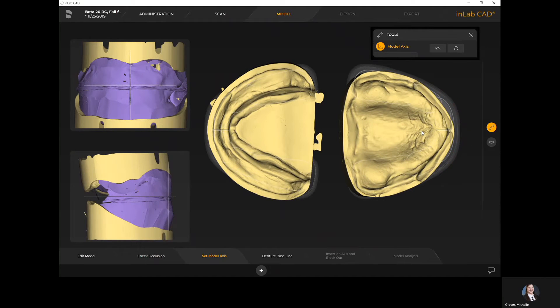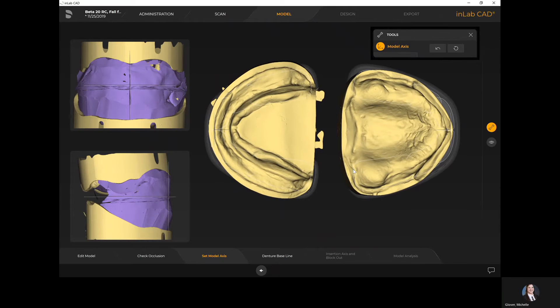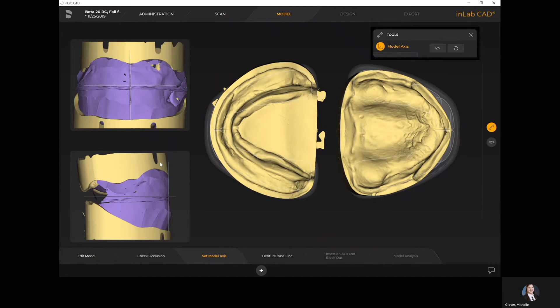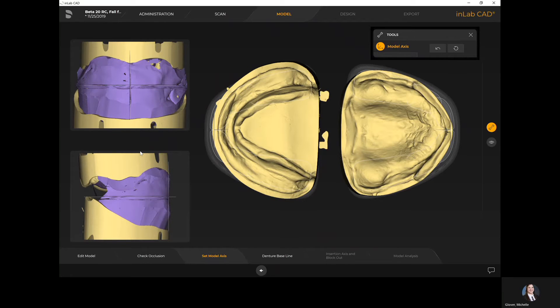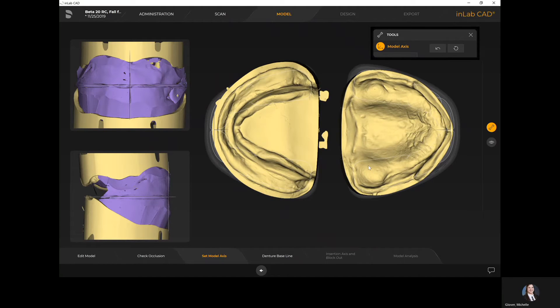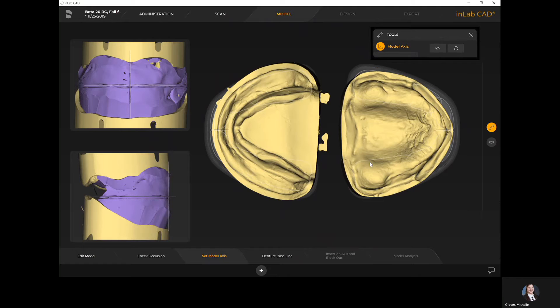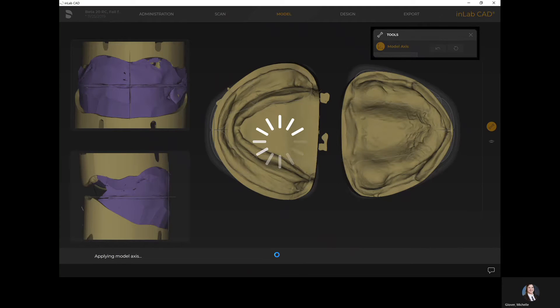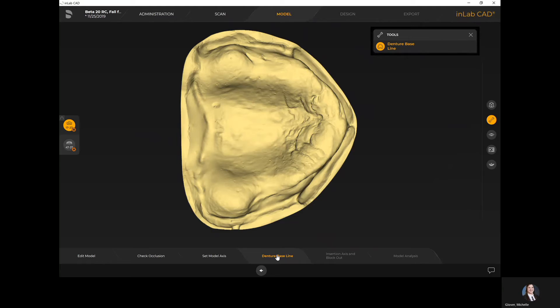Now in the set model axis step, we're lining up a couple of key things. On the right-hand side we are lining up our arches within the two horseshoe shapes representing the upper and lower jaw, broken down into quadrants and sextants. I always recommend moving your upper jaw because the lower jaw will follow based on occlusion. Your right cursor physically picks up your model and moves it; your left cursor curves and rotates it. On the left-hand side you have a better view of your midline, your occlusal plane, and your facial lip support from a profile view — all working together to help the software position the teeth.